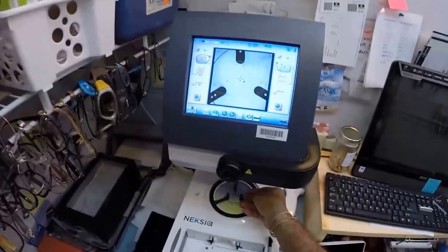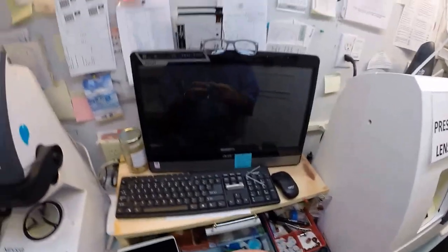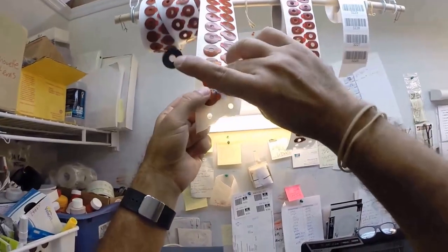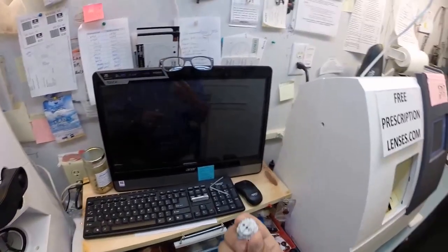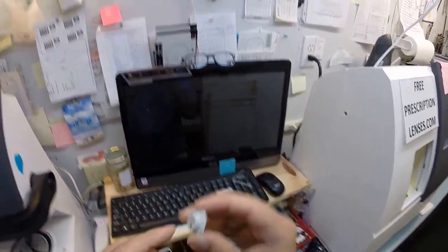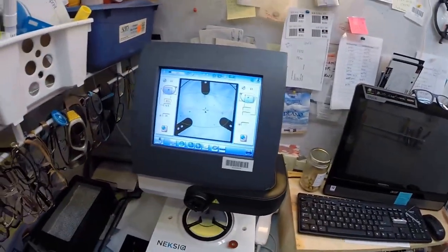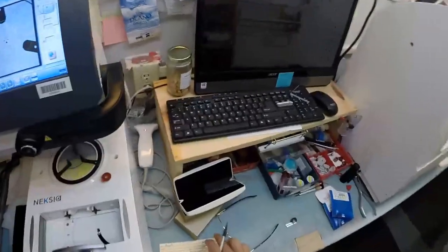Let's take everything up. Let's go ahead and take your right lens, put it on this platform. Your left lens I can set down here. So this is a block, or as I like to call them, Jenny from the block. I need to attach this to your lens while it is cutting. I need a double-sided adhesive sticker. The black side is the sticky side. I am going to stick one onto the first block and put one onto the second block.